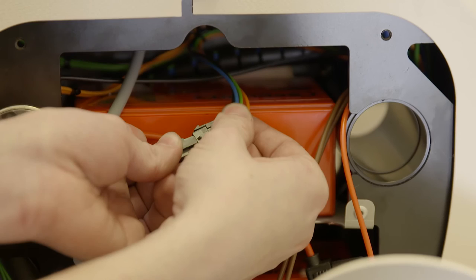Finally, connect the joystick cable to the PCB cable, making sure that the two cables are free to move as the seat rotates.